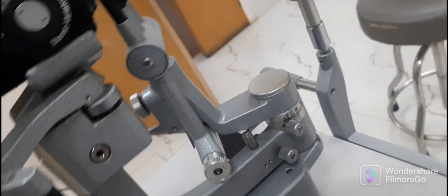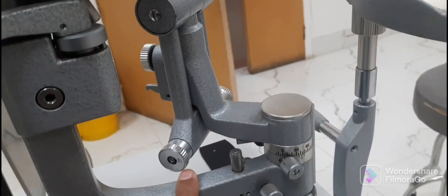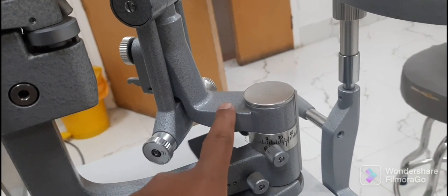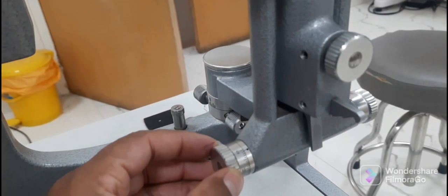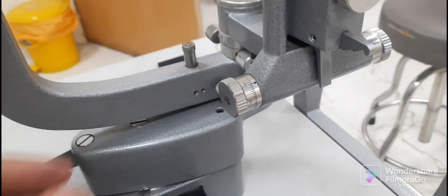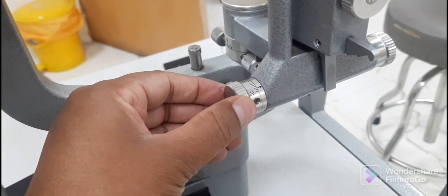Now let us come to the illumination arm. This is the overview of the illumination arm as seen in the video. There is a scale which shows the angle between the observation and illumination arm, with markings from 0 to 90 degrees, useful for setting the angle between them. There is also a knob used to adjust the width of the slit during examination, with a scale from 0 to 8mm, adjustable by rotating clockwise and counterclockwise.